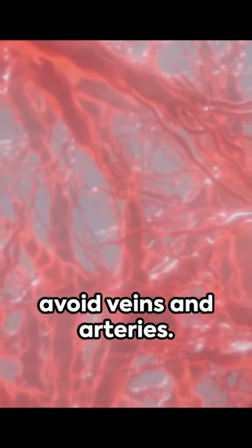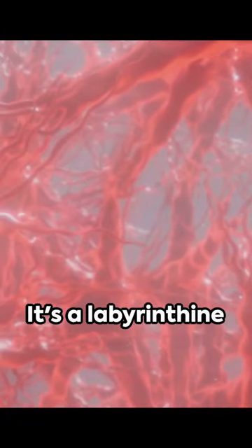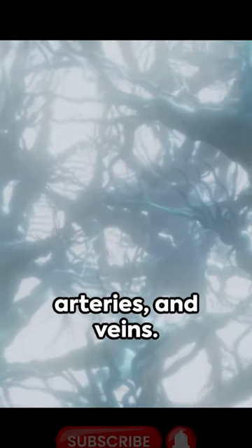Neuralink robot could avoid veins and arteries. It's more than a complex symphony of neurons. It's a labyrinthine web of life-giving blood vessels, arteries, and veins.